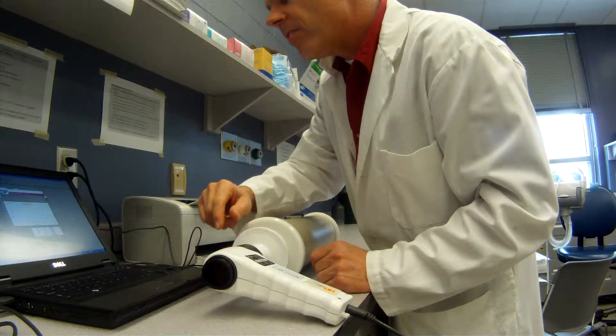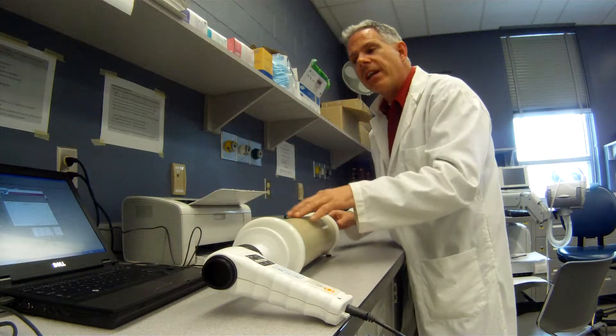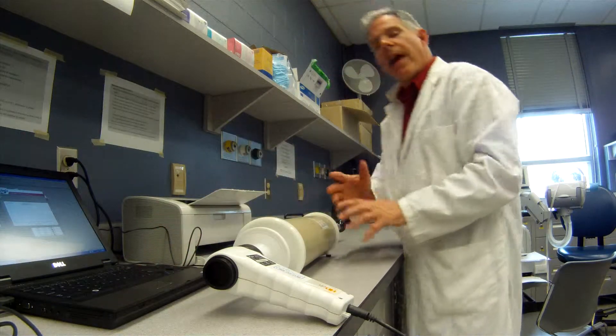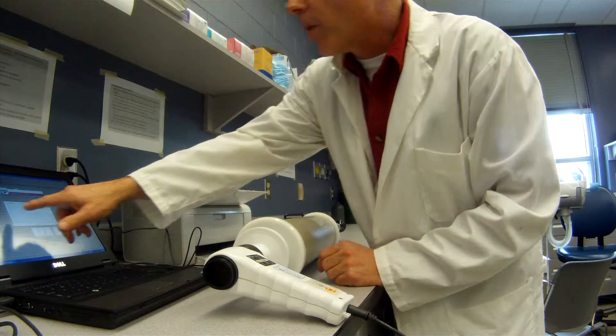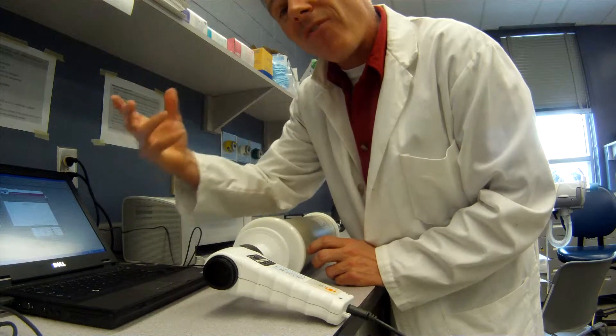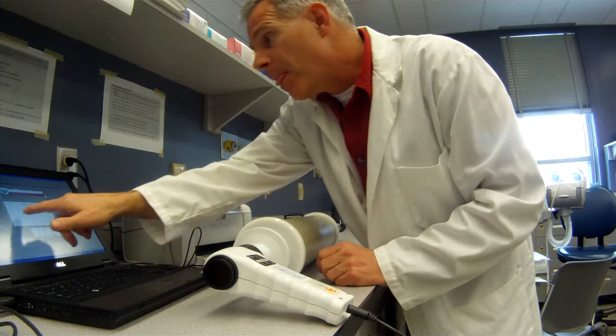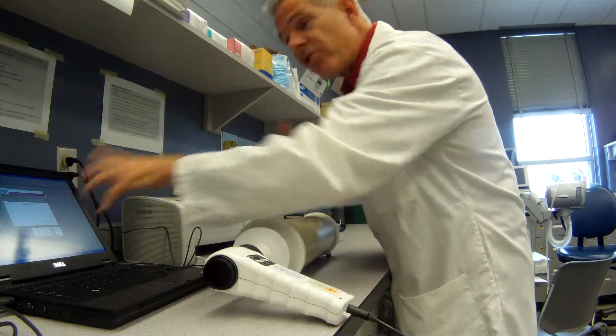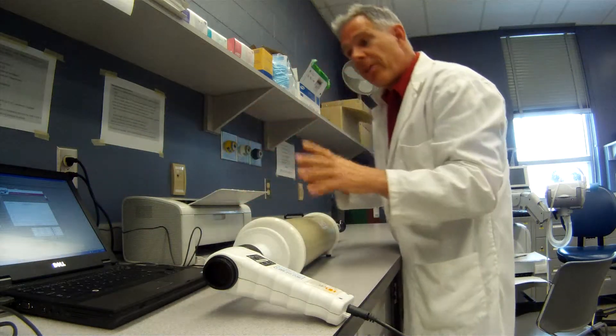Now it doesn't give us any guidelines. You just need to know that we want to make sure it works at a medium flow rate. So I pull back on there to get to about that 4 to 5 liters per second. I measured my volume at 3.03 liters. So you have to read that off the screen to make sure it's correct.